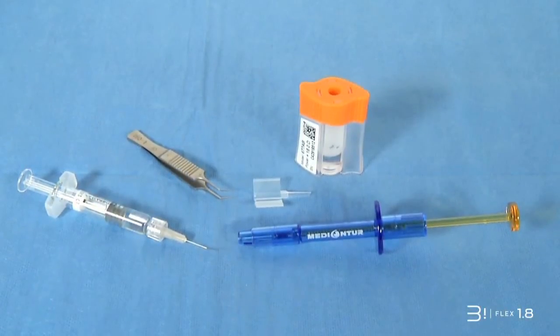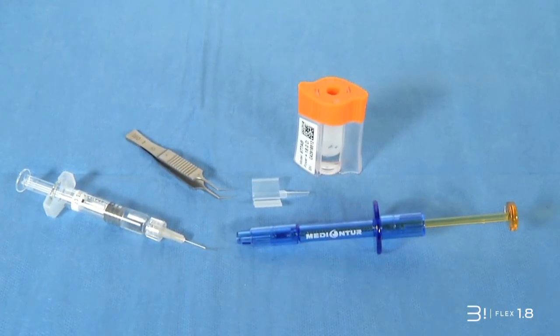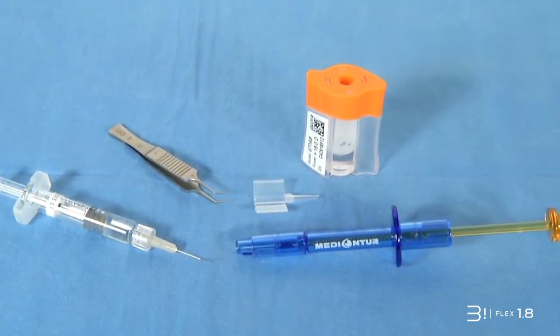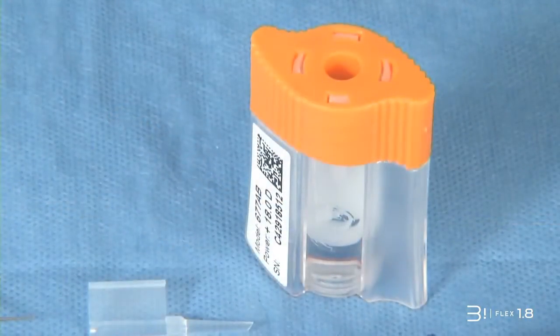The loading of the IOL is certainly one of the most critical steps of the overall surgical procedure. We recommend performing this loading under the operating microscope, respecting the following steps and recommendations.